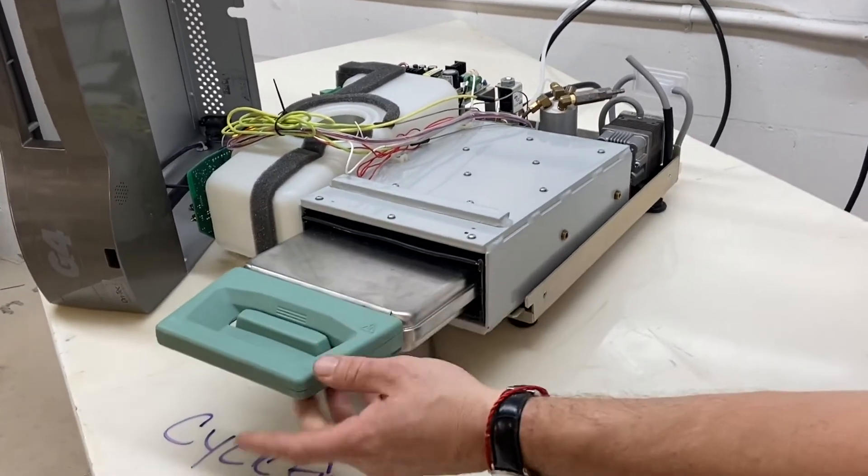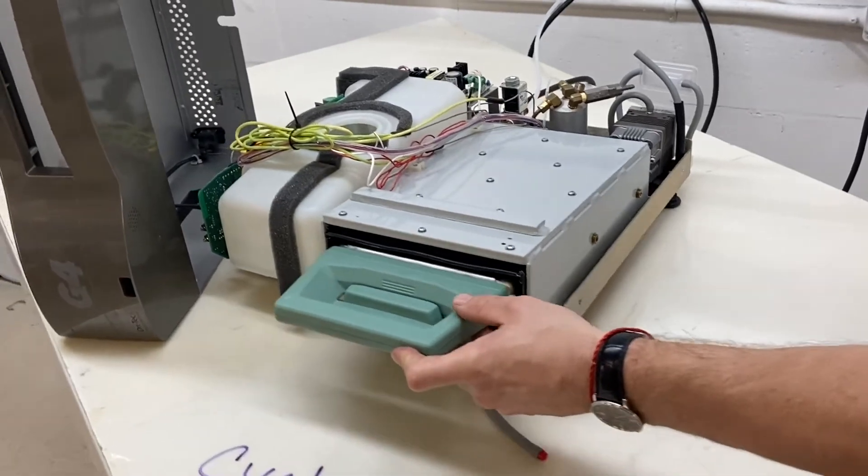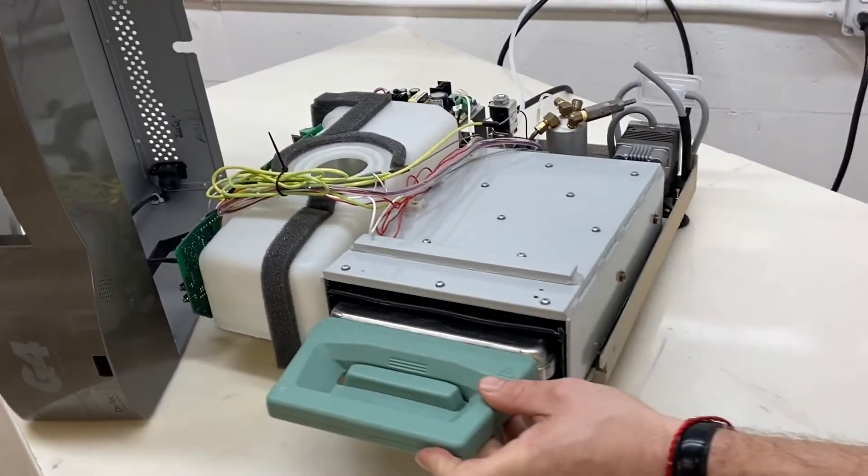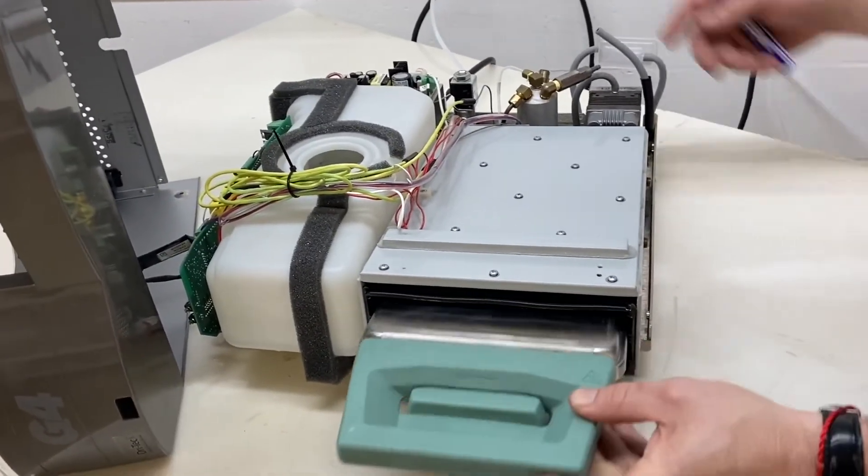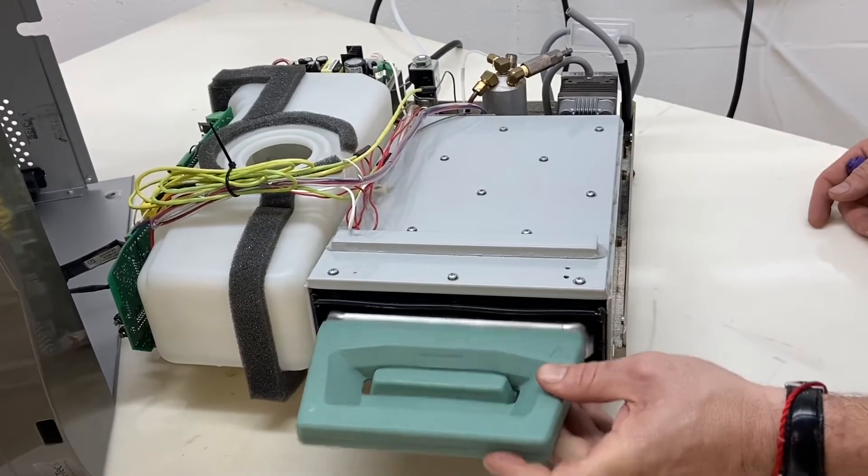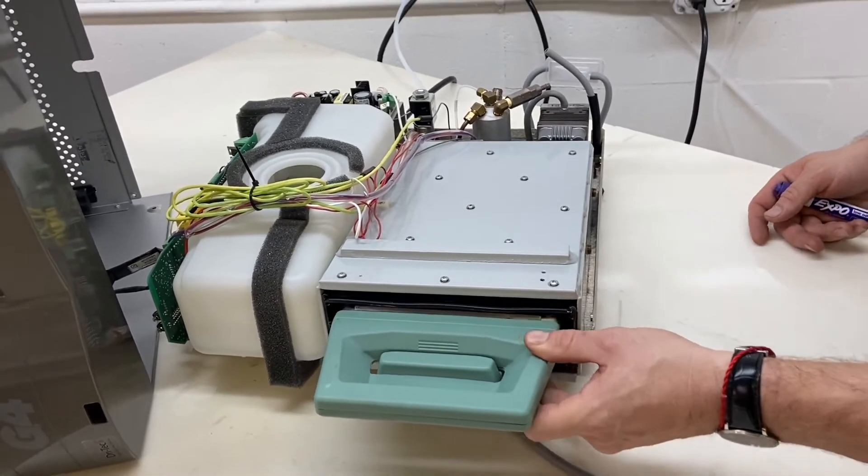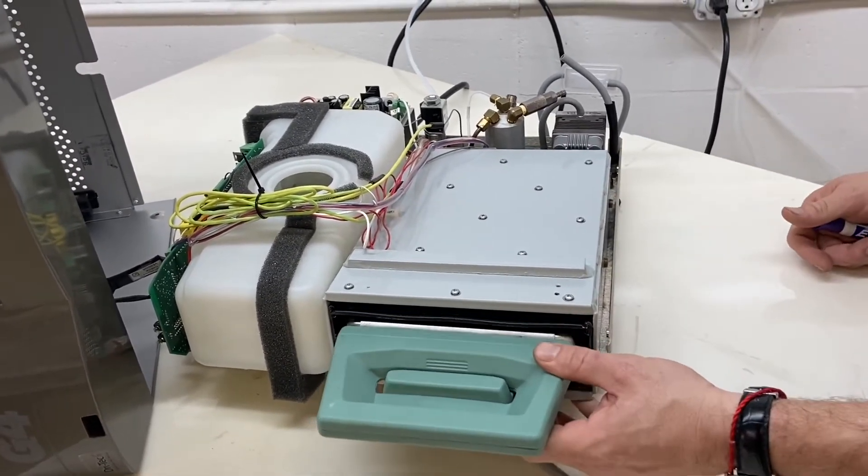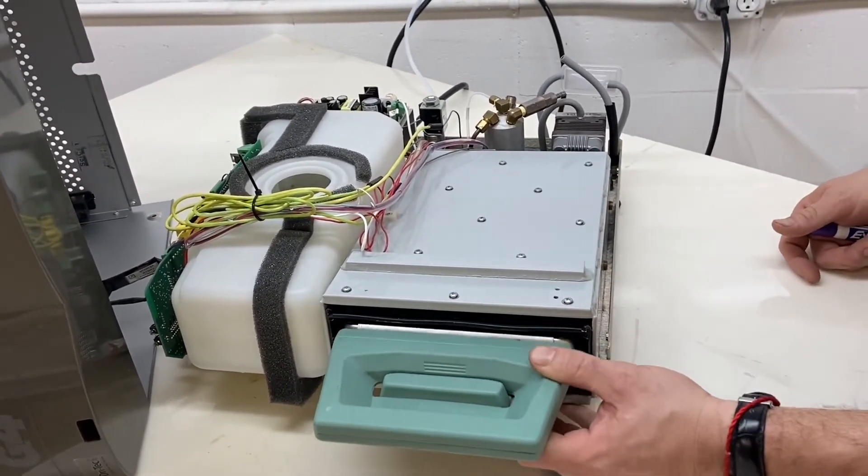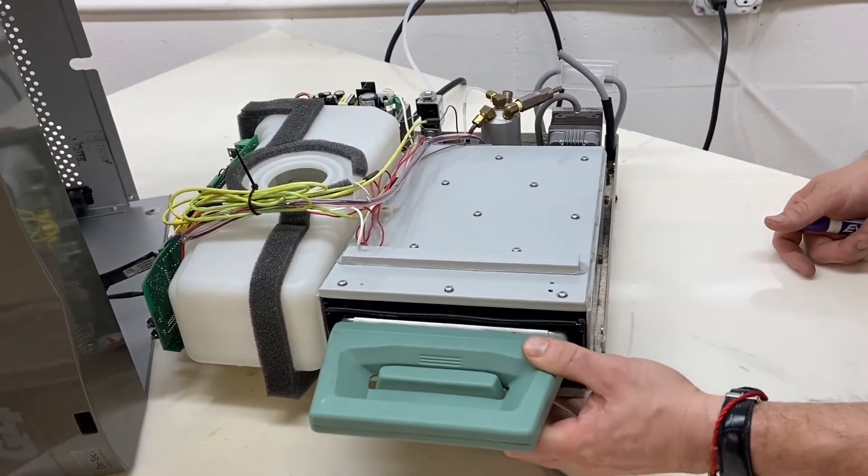We are going to go to the cassette. We're going to listen to the solenoid. Make sure your machine is powered on. Every time you push the cassette in, the solenoid clicks and opens. It should be nice and loud like this.